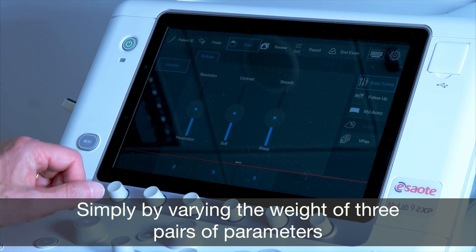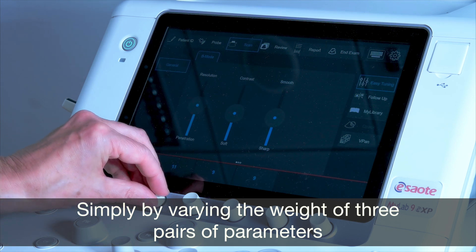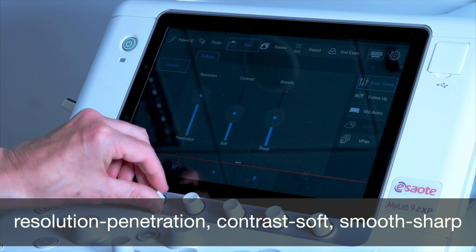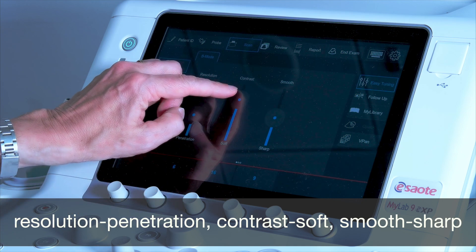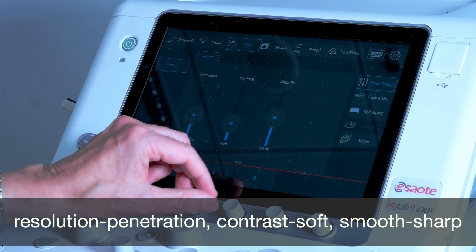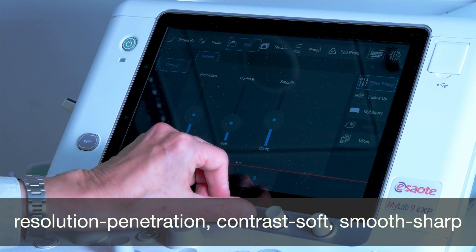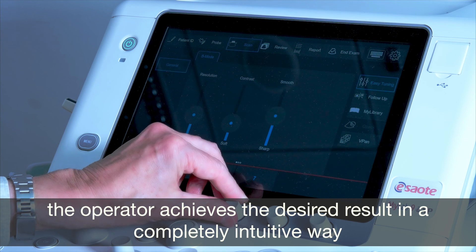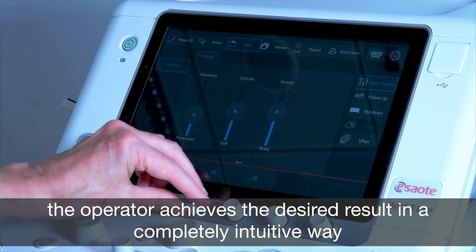Simply by varying the weight of three pairs of parameters — resolution/penetration, contrast/soft, and smooth/sharp — the operator achieves the desired result in a completely intuitive way.